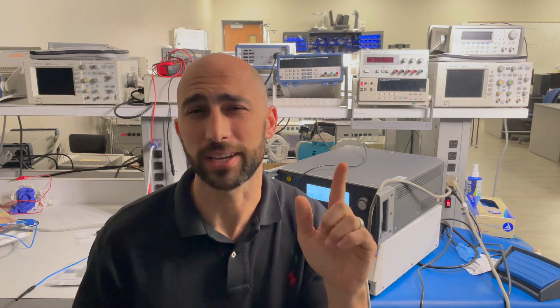Before we talked about how electrosurgical generators operate at really high frequencies, around 500 kilohertz. Let's look at some of the effects of high frequency in an ESU.